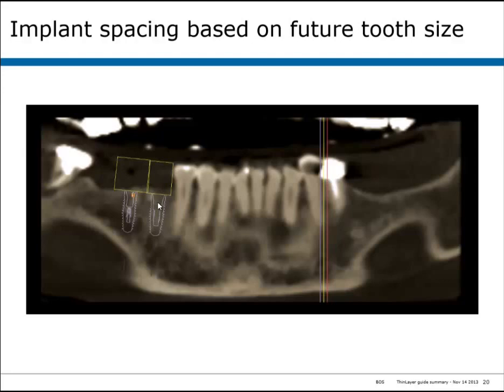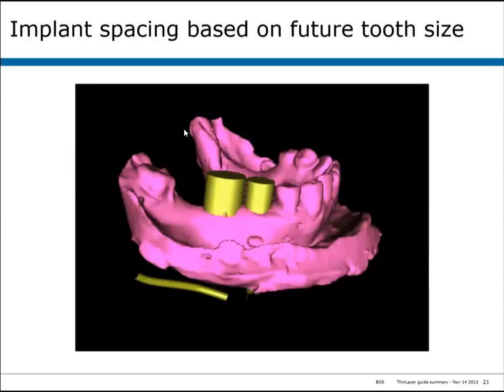This implant is then duplicated and the duplicate is moved distally. A 10 millimeter abutment is placed because this is going to be a molar, and the abutment is placed in contact with the bicuspid abutment. Now the spacing between these two implants is ideal because each is based upon the size of the future tooth. On the stone model, the position of these implants can be adjusted as if you were setting teeth on a model — very precisely, achieving ideal positions.